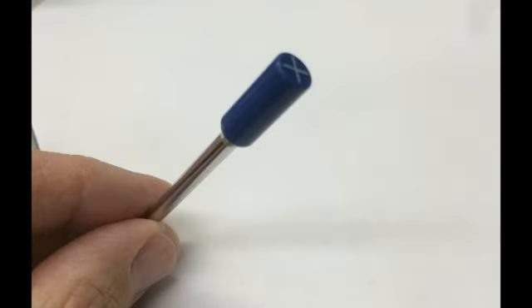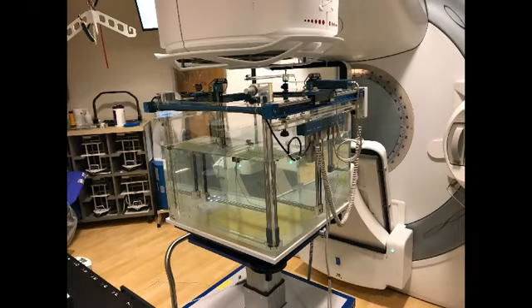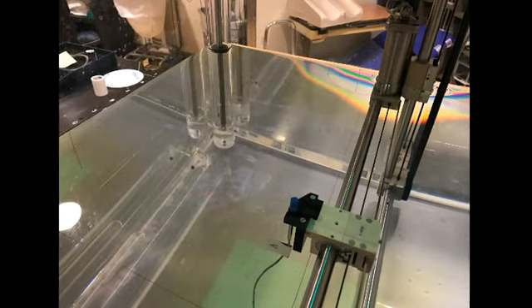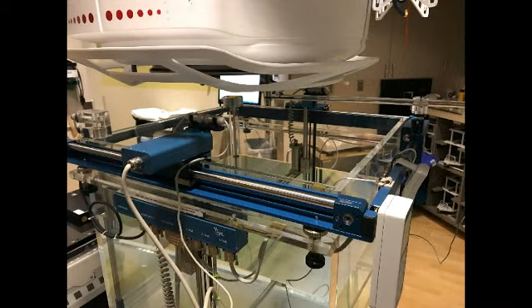Now I'd like to say a few things about how diodes can be configured for different applications. The one I'm showing here is a scanning diode used to measure radiotherapy beams. This is a water tank that sits under the linac filled with water, and the diode device is mounted in the center here on a holder.